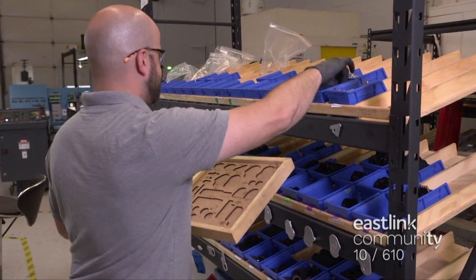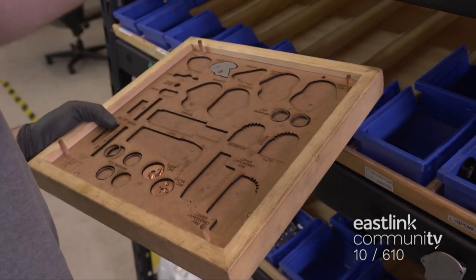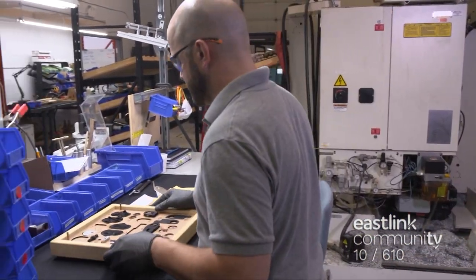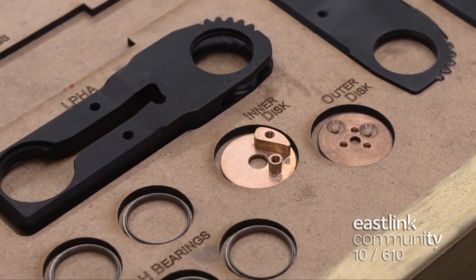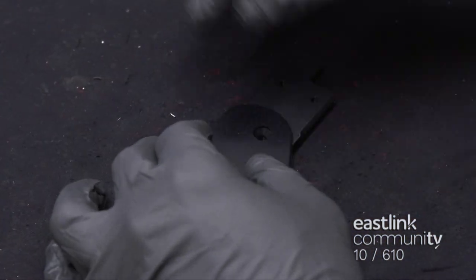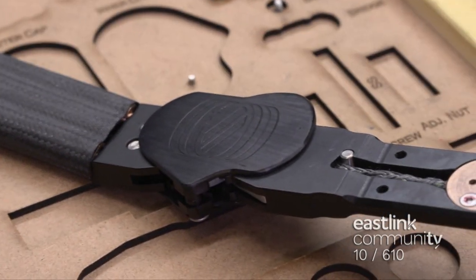To assemble the hinge, all parts required are picked from inventory. Each brace has two hinges, one on each side of the knee. The hinge is designed to bend in the same way as your knee bends. The hinge parts are made of bronze, aluminum, steel, and a high-strength cord material. The hinge is assembled by hand. After many careful assembly steps, the spring-loaded hinge is complete and is ready to be installed in the brace.